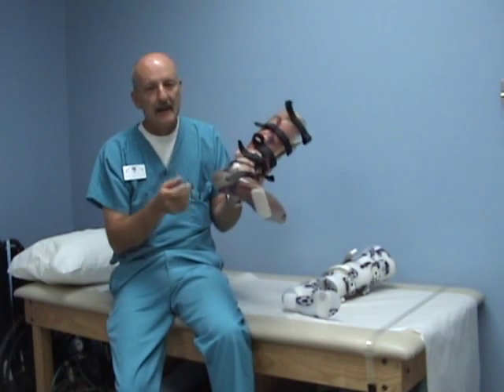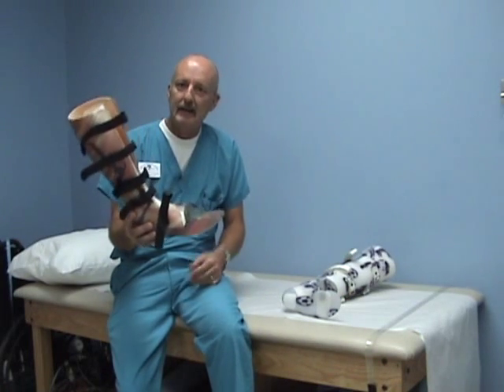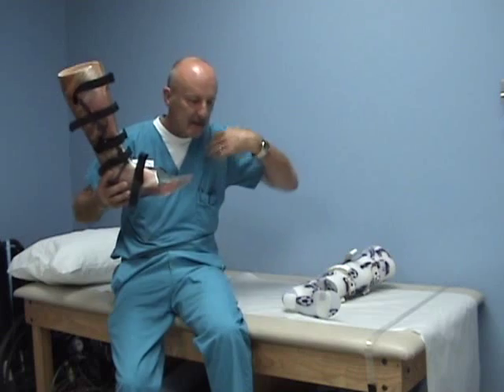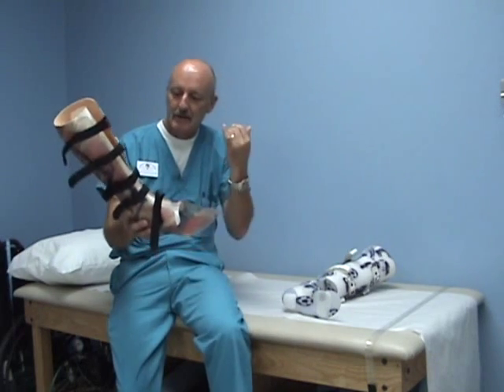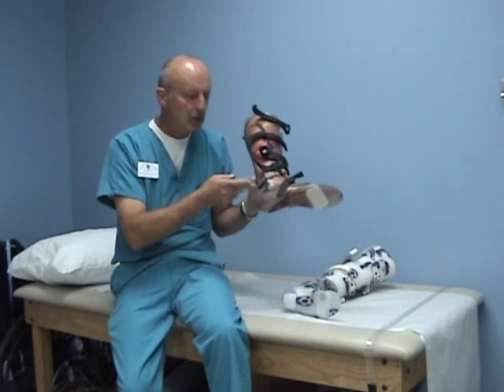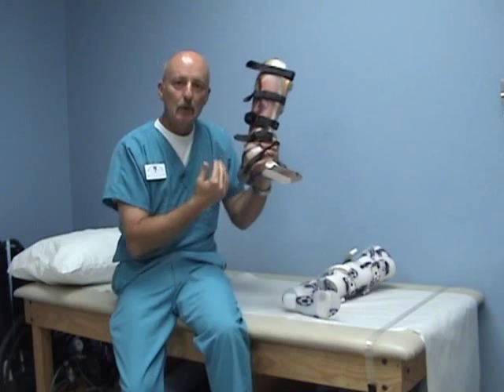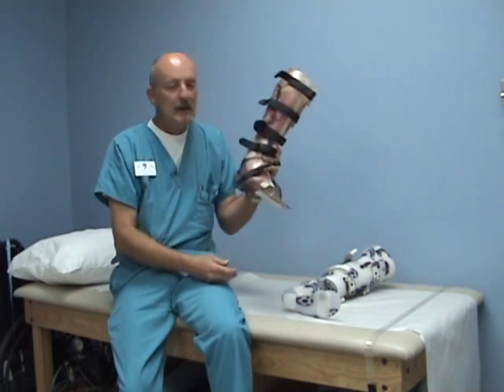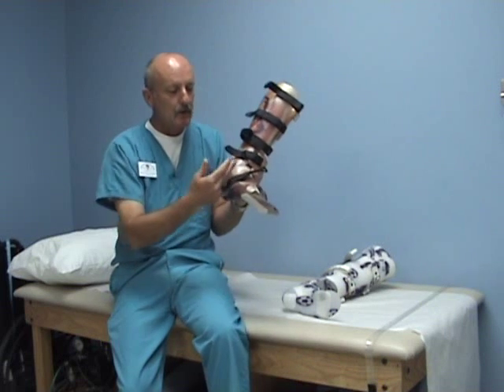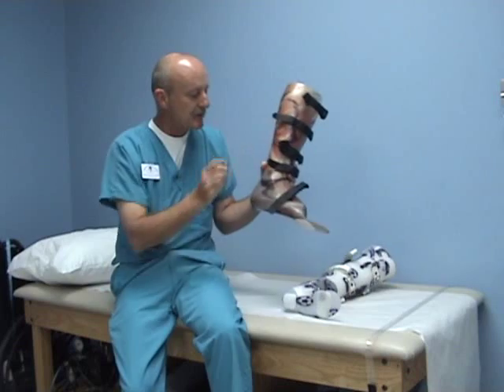This is a very effective design for temporary and healing conditions — osteomyelitis, calcaneal fractures, talus fractures — any time you want to unweight the distal tibia, talus, or calcaneus. Once the weight shifts forward, if you have issues in the midfoot, you're weighting the midfoot, so it's not nearly as effective in those areas. We're talking primarily calcaneus, talus, and distal tibia.